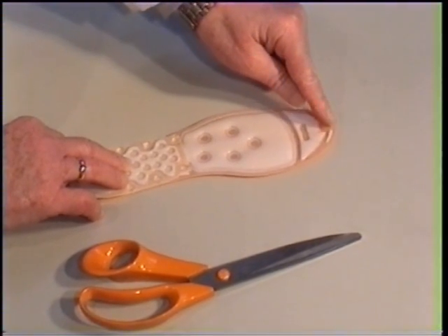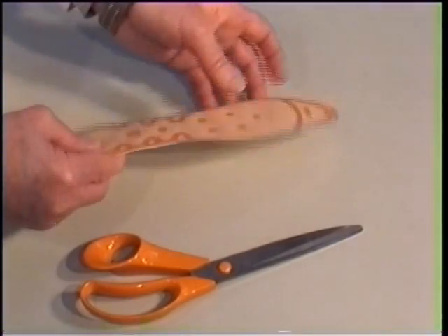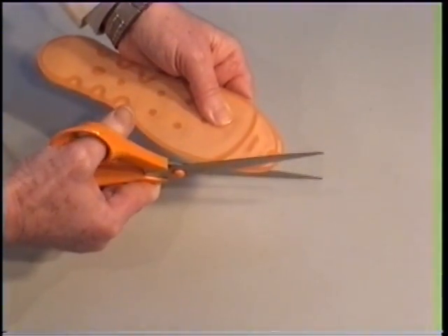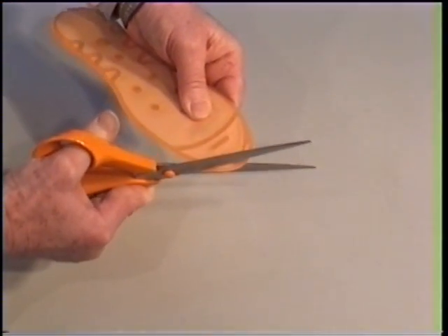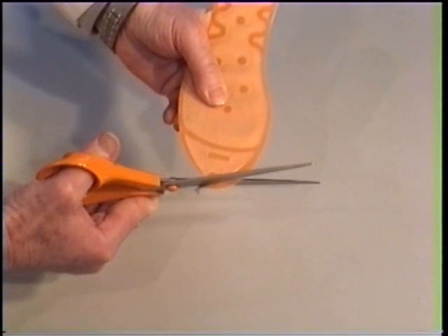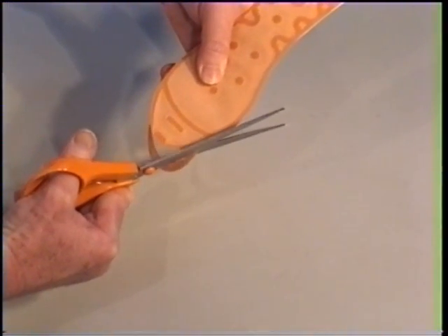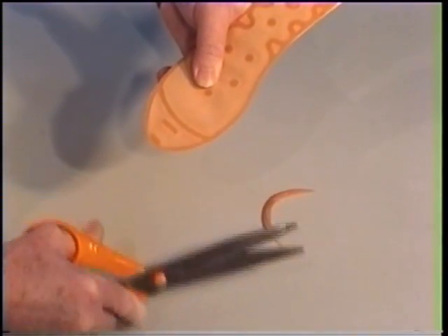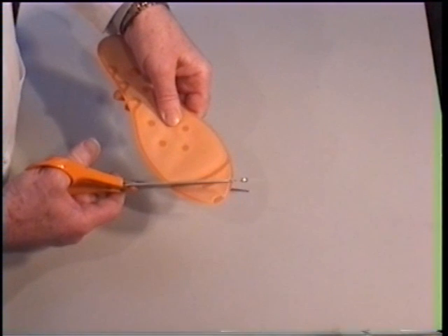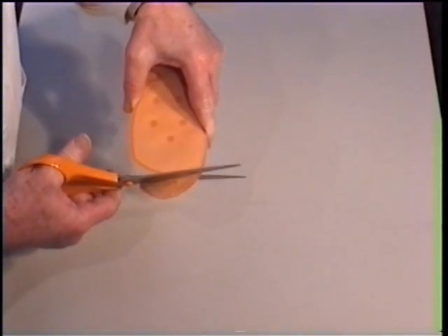The soles come in 2 sizes, and the toe end of the sole can be adjusted for length. A size 41 can therefore be cut to fit a size 40. This is done by using the scissors in this way. The tip of the sole can also be removed if there's not enough space for the toes, for instance in the case of hammer toes.